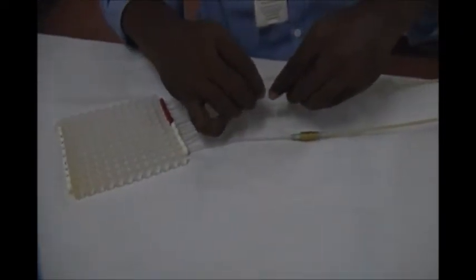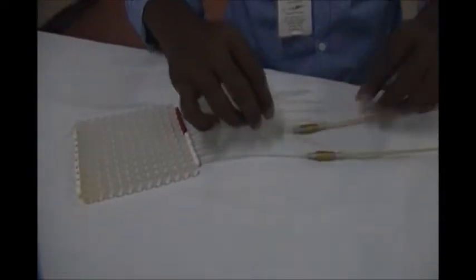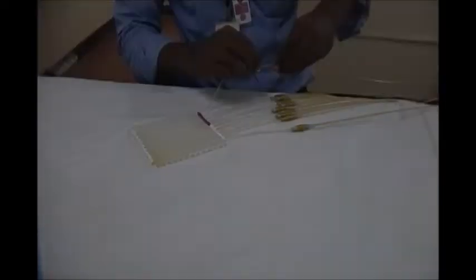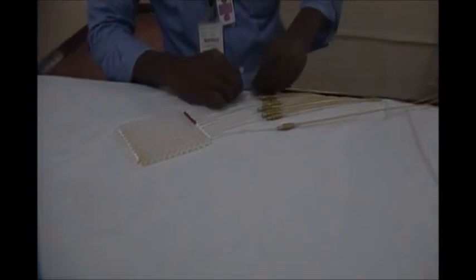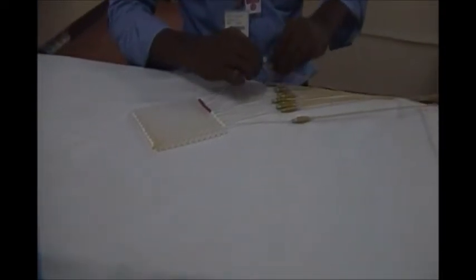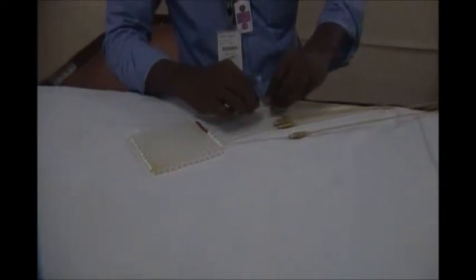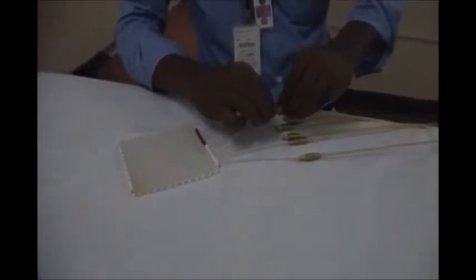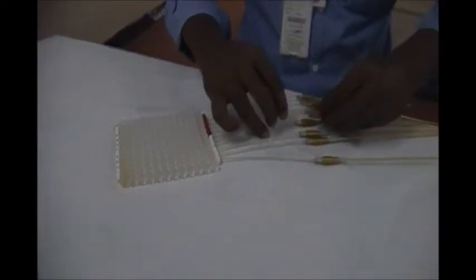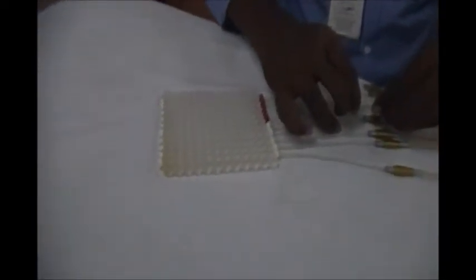This is the difference that has been mentioned in the control panel when we programmed it. Now all the transfer tubes are being connected to it, and we need to make sure that they are properly connected and the other end of the transfer tubes are connected to the right channel on the HDR unit.